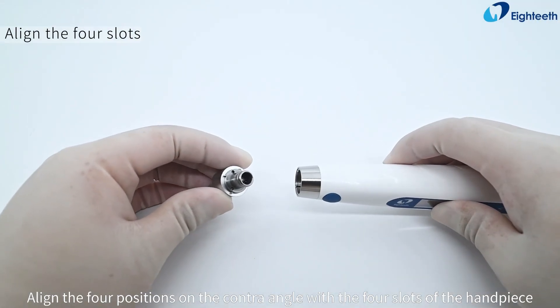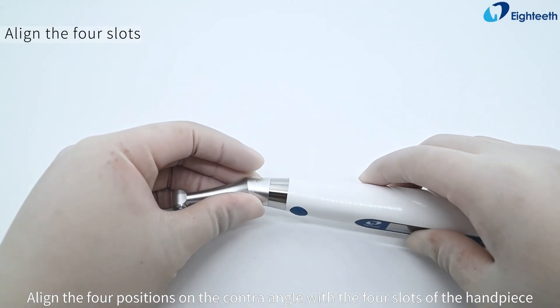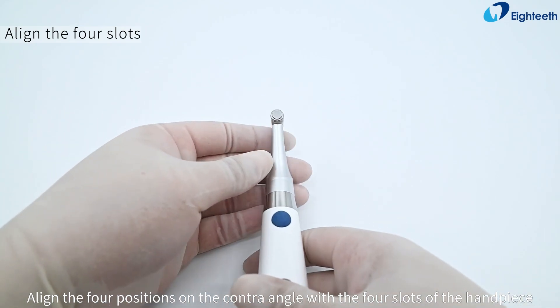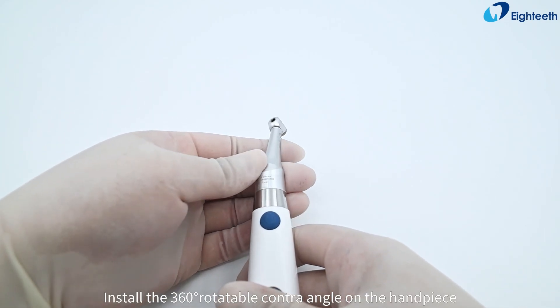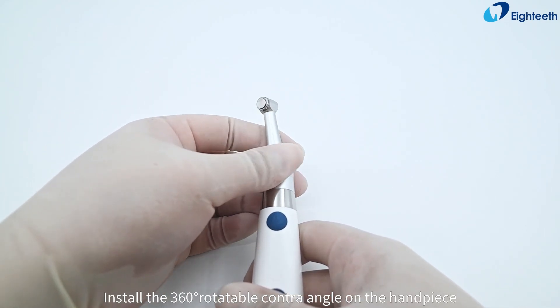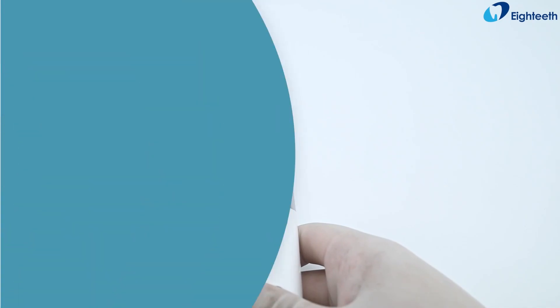Align the four positions on the contra angle with the four slots of the handpiece. Install the 360-degree rotatable contra angle on the handpiece.